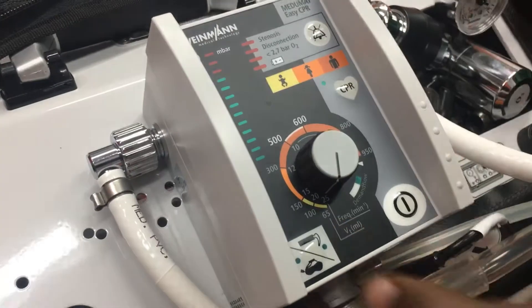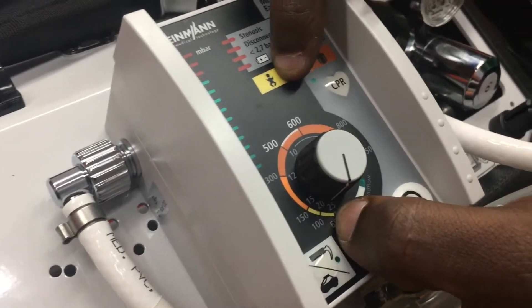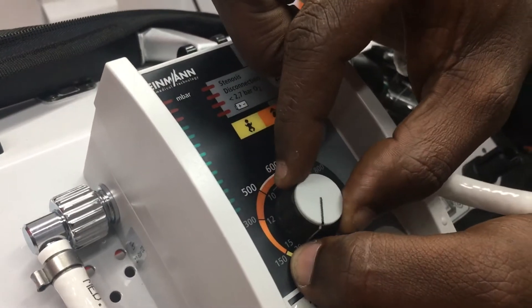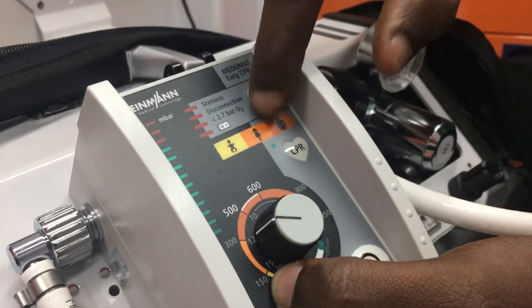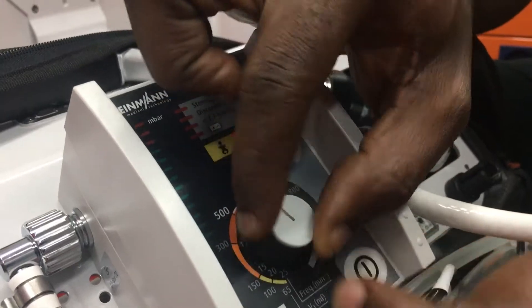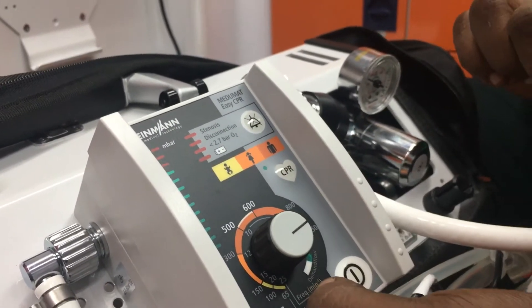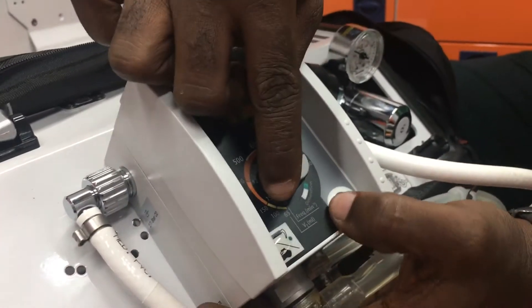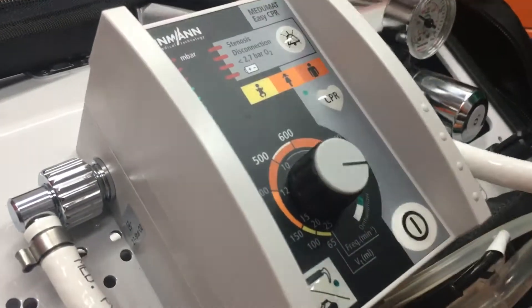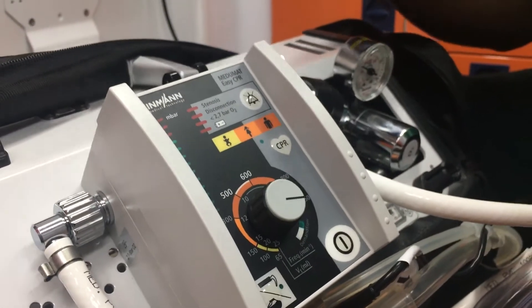Beneath the patient mode knob there are color codings with number indications. The yellow color coding is for neonate. The light brownish color from 150 to 300 is for pediatric. Adults start from 300 to 950, which is deep brown in color. After that we have what's called demand flow, which works on patient demand.